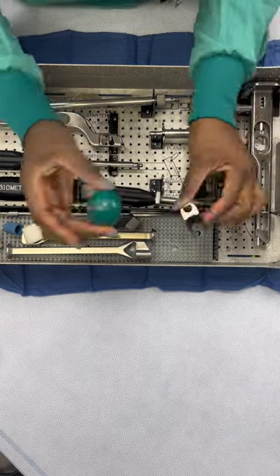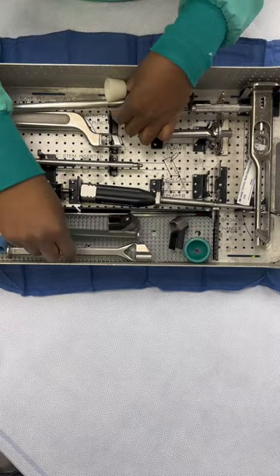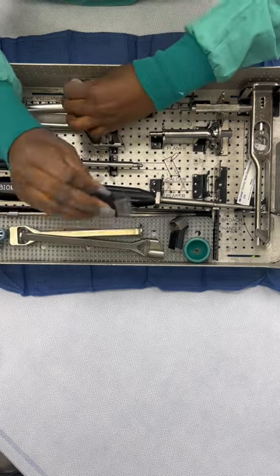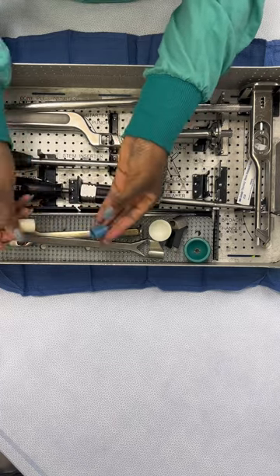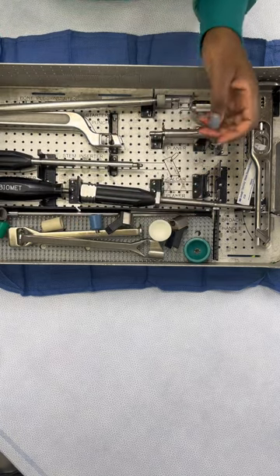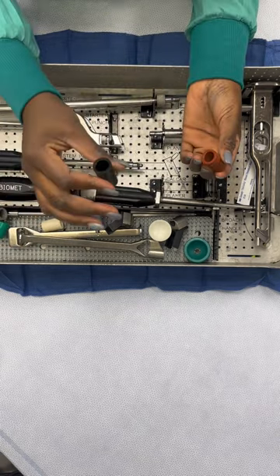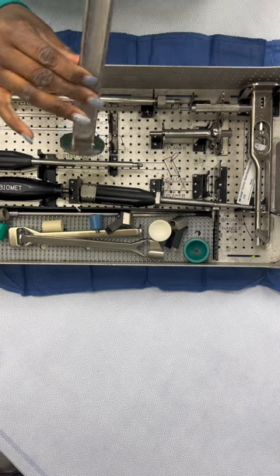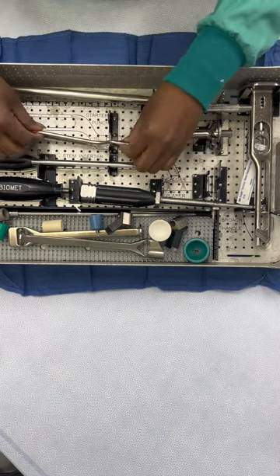I'm just picking up my instruments making sure everything is clean, looking through all the holes. It's always very important that you look through your instruments, especially for these loaner sets — they come from other hospitals and they don't always clean them well, so you just have to do your own due diligence.